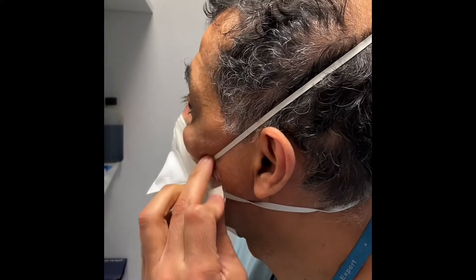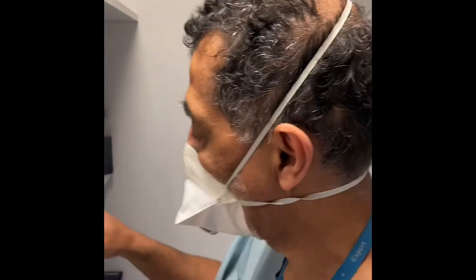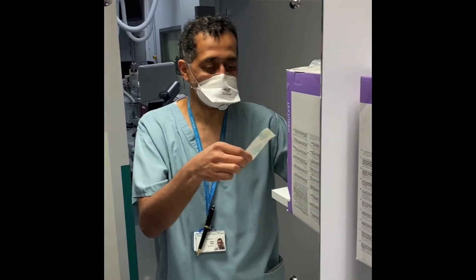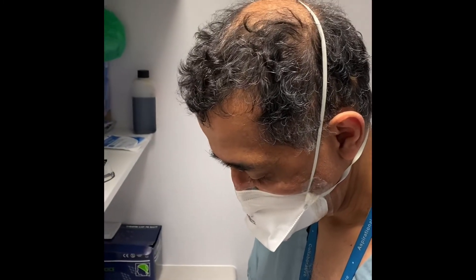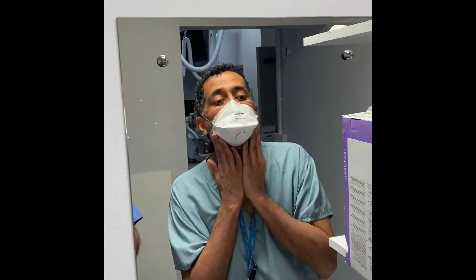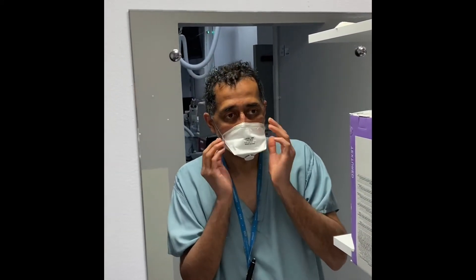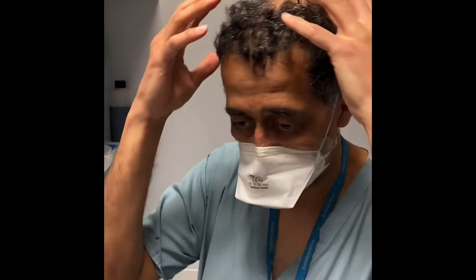Try to take the backing off while leaving the Tegaderm behind. There's a little gap in the bottom, so the last piece will cover that little gap. Now I've got an airtight seal and I can put my goggles on.